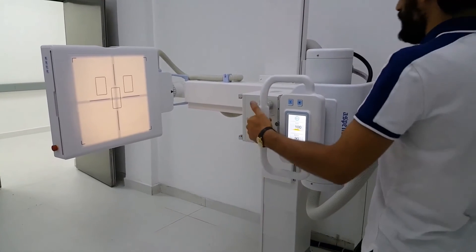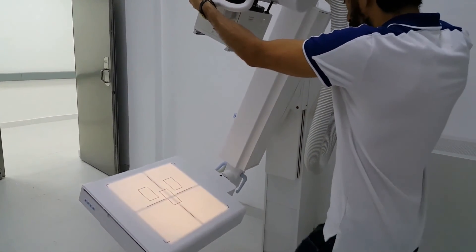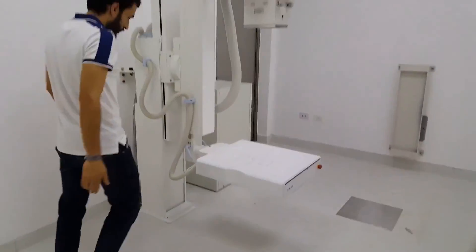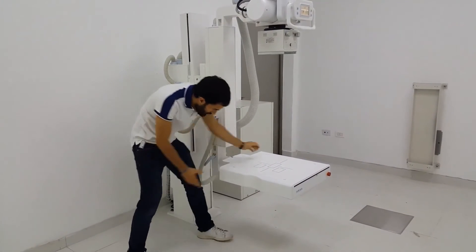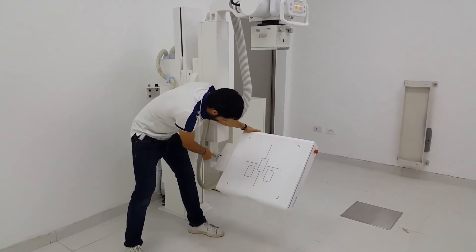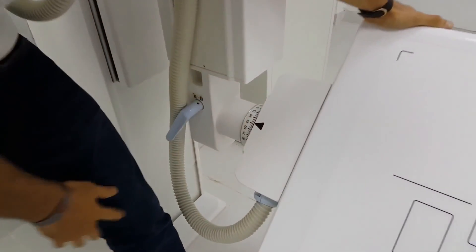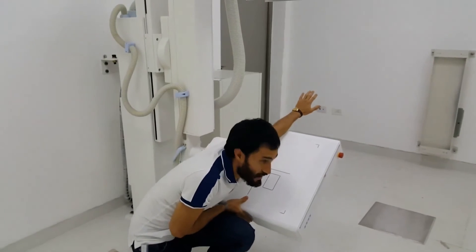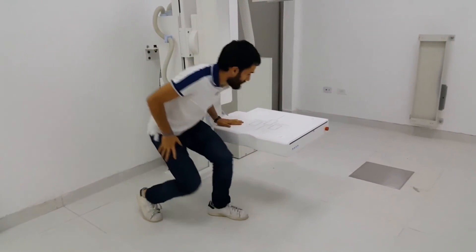Let's turn it back to zero degrees. Finally, there's another mechanical configuration you can do: if you unlock this brake, you can actually move the detector 45 degrees or whatever angle you need. This is the angle that you will be moving the detector — useful for projections like an elbow or similar. You can pre-establish it to zero degrees again and then just go up, and that's it.